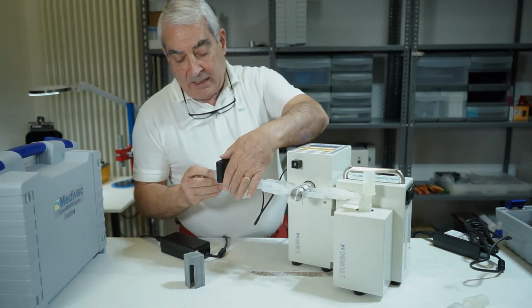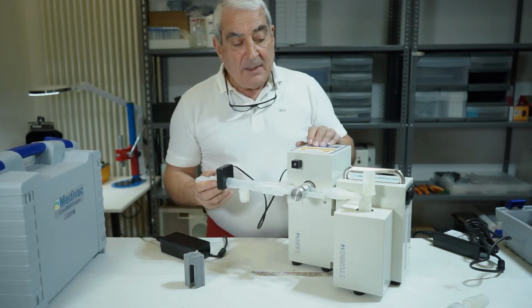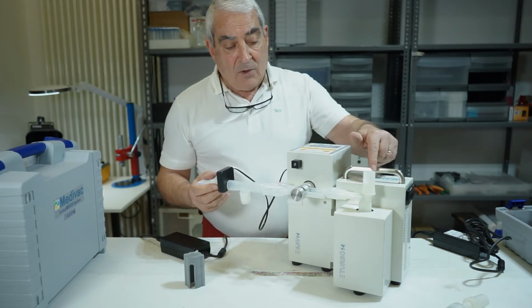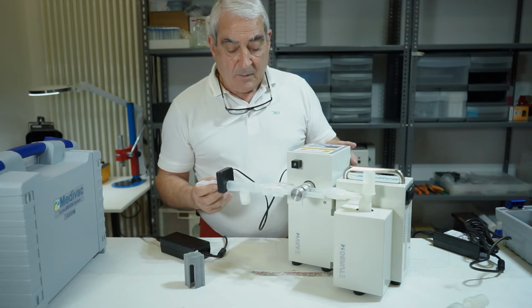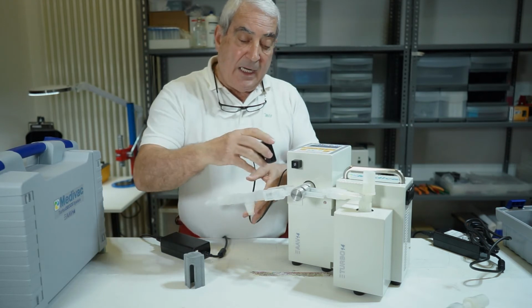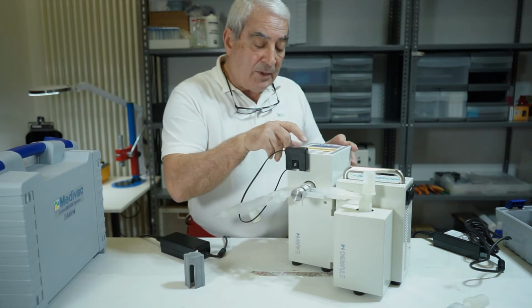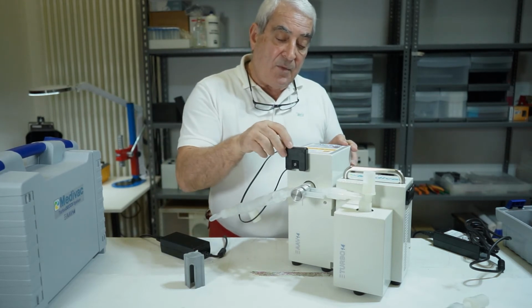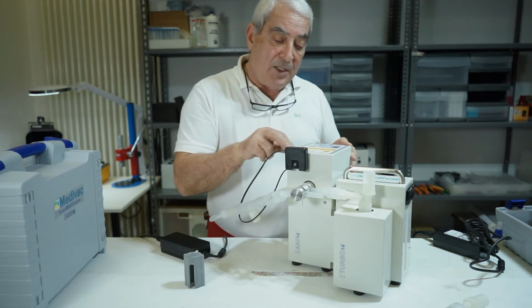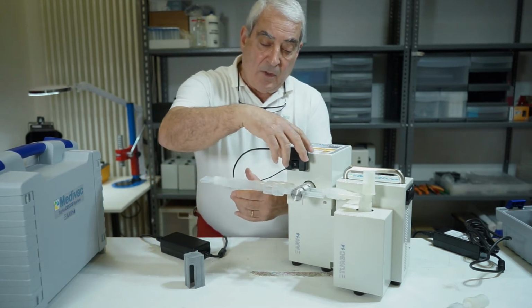Always following the instructions, we insert in the appropriate mouthpiece the capnometer, or CO2 detection, that therefore enables the activation and operation of the valve. Following the correct activation procedure, the capnometer must remain on its support in the blackout position for about 10 seconds. Later it will be moved to the detection position and fixed to the circuit.